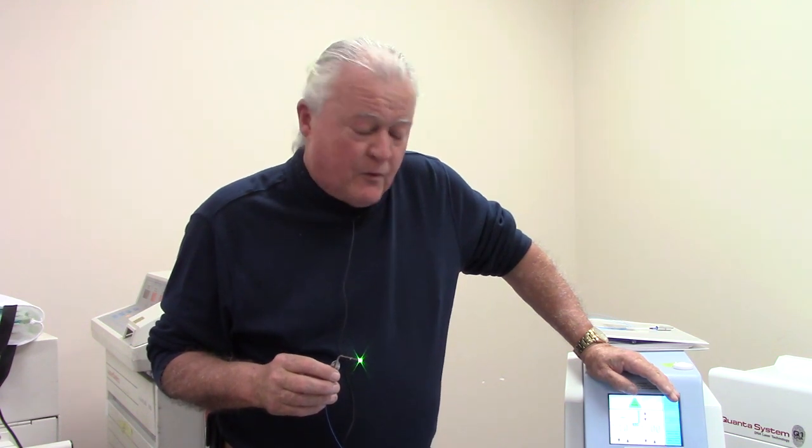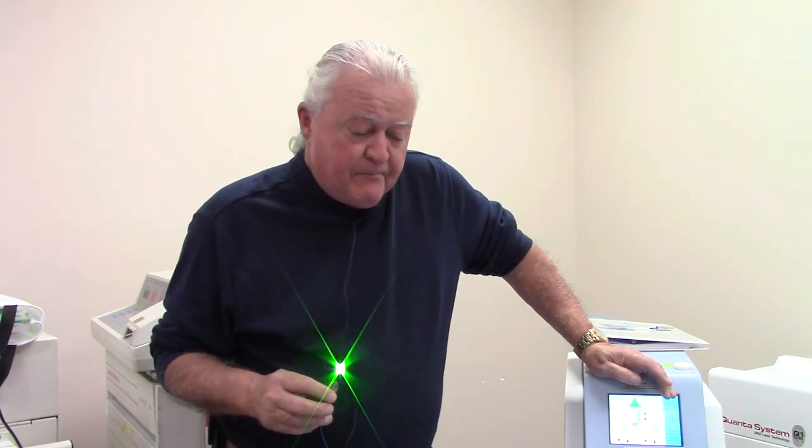It's not one of the higher power Holmiums for dusting, where you go up to much more power than that. But generally no more energy than that in terms of joules, so the same principles apply. It's just that on the higher powered units, the distance where a burn could occur is just a little bit farther.